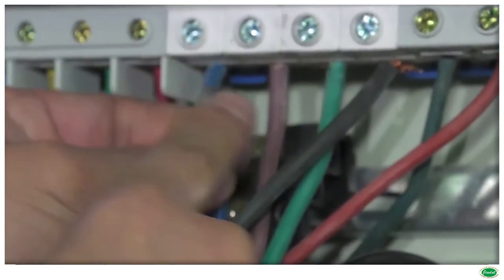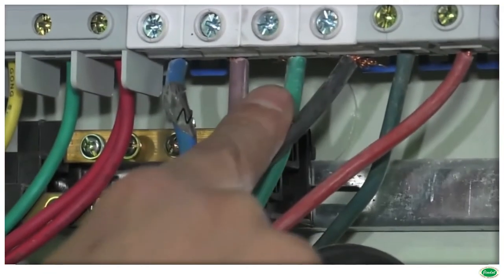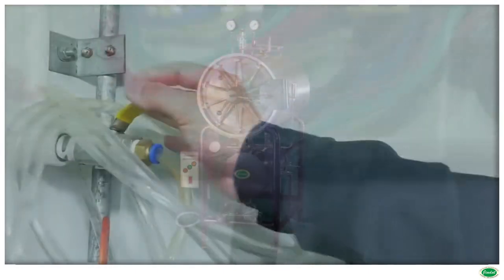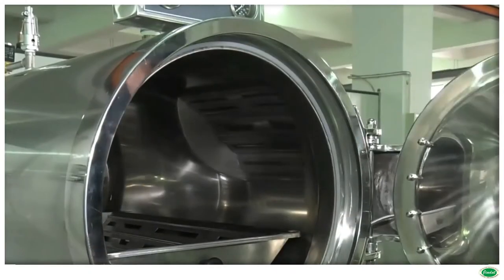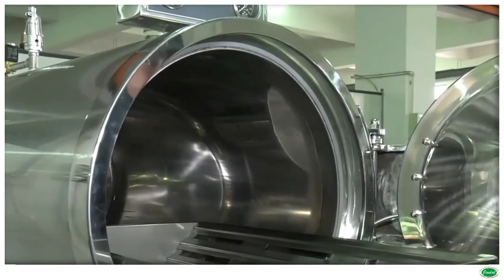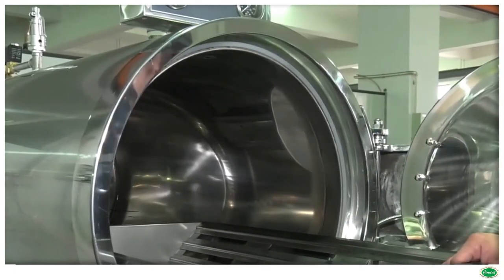The sterilizer is based on the principle that microbiological action of saturated steam at elevated temperature is rapid and thorough. All models work on the principle of downward displacement of air, which is the most economical method of obtaining sterilization.